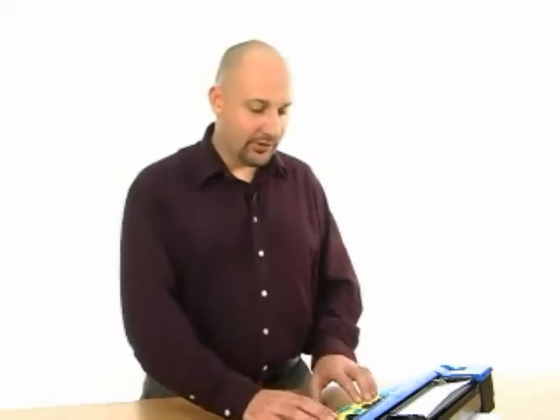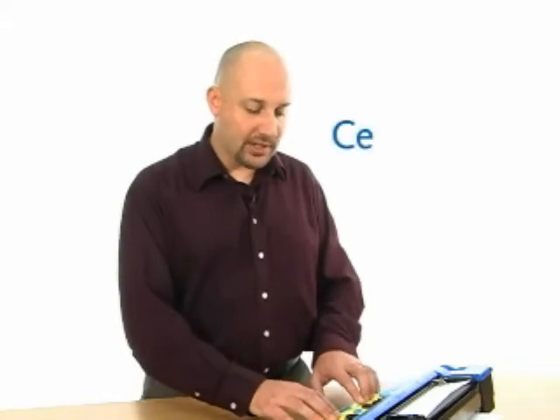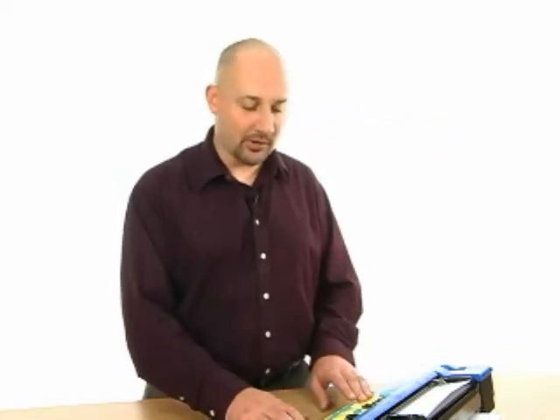The Mountbatten has a number of commands to allow you to format your Braille. For example, the centering command. You issue the centering command by hitting the command key and typing CE for centering. CE. When you hit enter, the unit says "on" to indicate that the command is on.